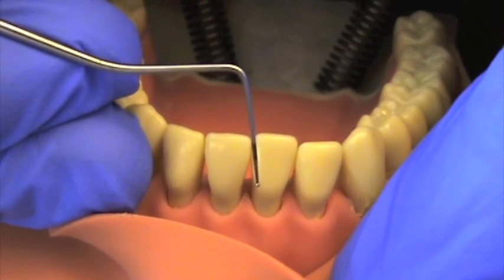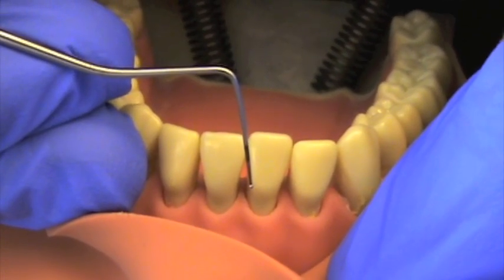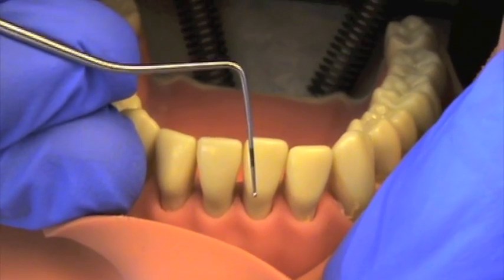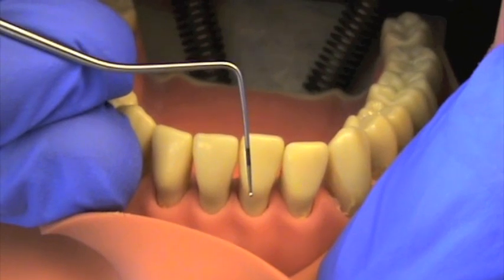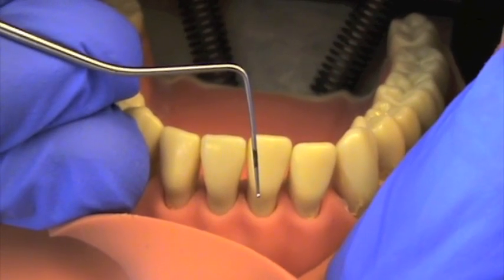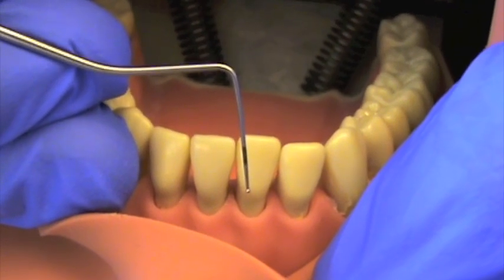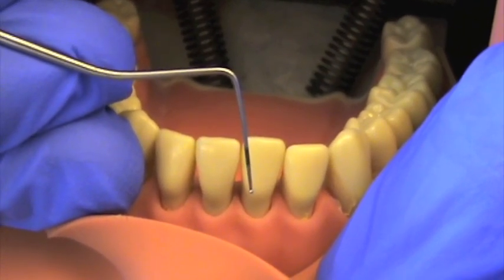The codes are 0, 1, 2, 3, and 4. As a reminder, the WHO probe has a black band from 3.5mm to 5.5mm. This is used to determine which codes are awarded.